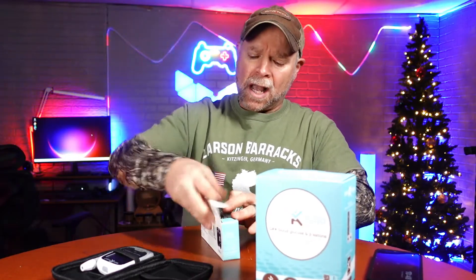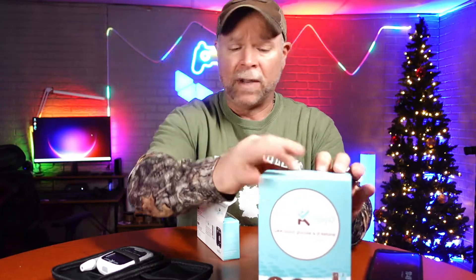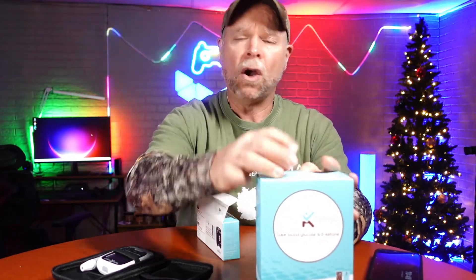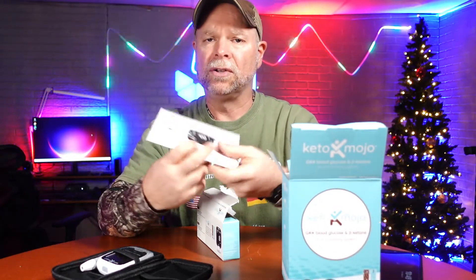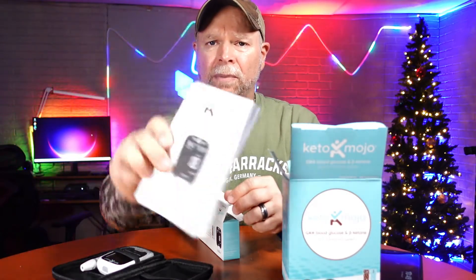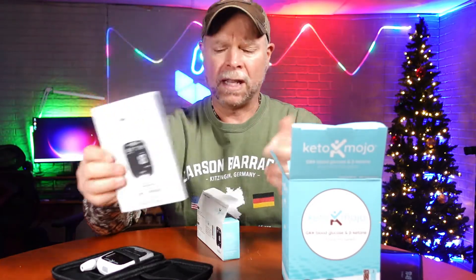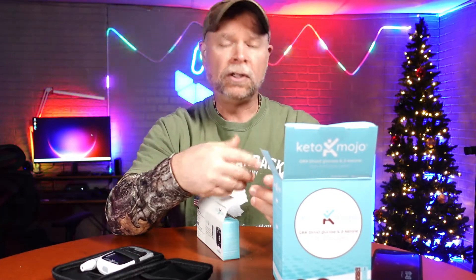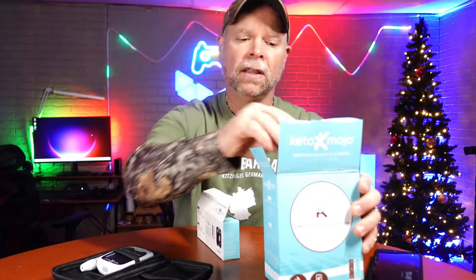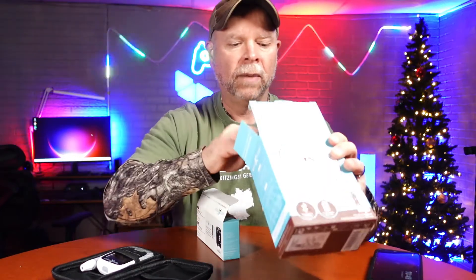I'm going to show you how to do a quick test. Inside the box there is a lot of information and it can really seem pretty overwhelming. You're probably going to want to take a look at the instruction manual, but if you just follow this video I'm going to show you step by step how to check it. It's a really big instruction manual, very detail oriented. It's going to advise you to download the app so that you can have everything connected via Bluetooth and go back and check all of your readings. Then there's your warranty information.